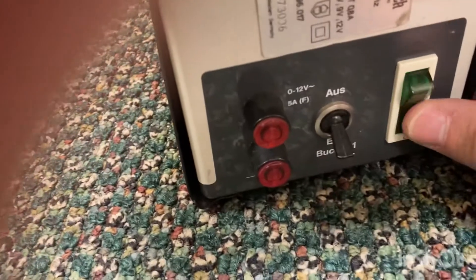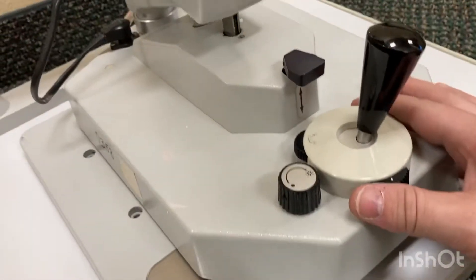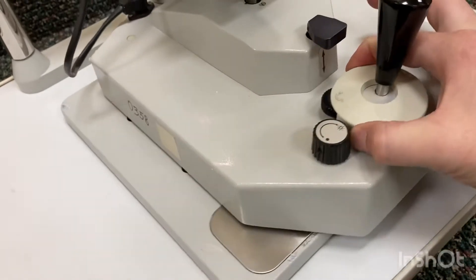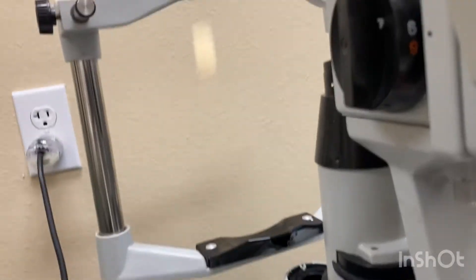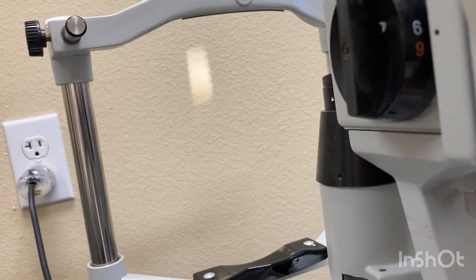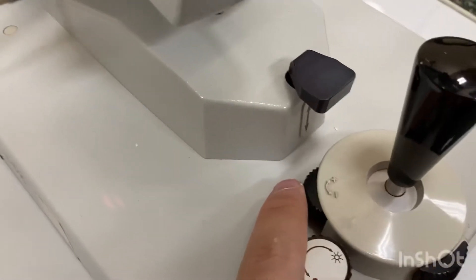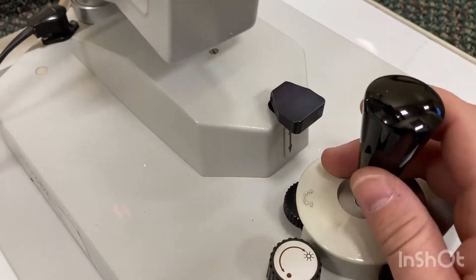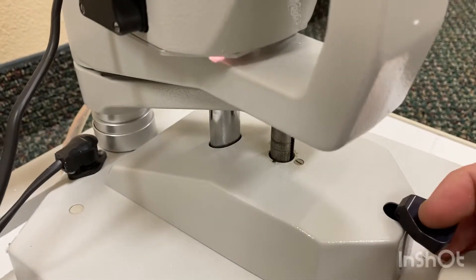On here you've got just the power on and off button, that's it. Then some German words and Rodenstock, but up here it's got the same thing like in the other video. This is the lock — you unlock it, it'll slide around, and you lock it and the slit lamp's not sliding around. This is the dimmer switch so you can dim it and brighten it back up. Then this is a knob for sensitivity. You can move it back and forth — it's just normal no matter where you put it. You've got the lock, the move around, and then the electronic up and down.